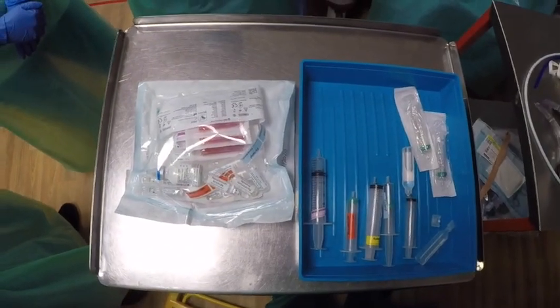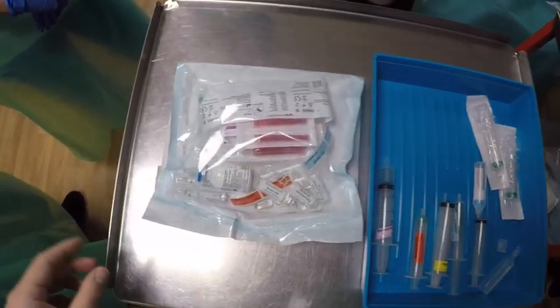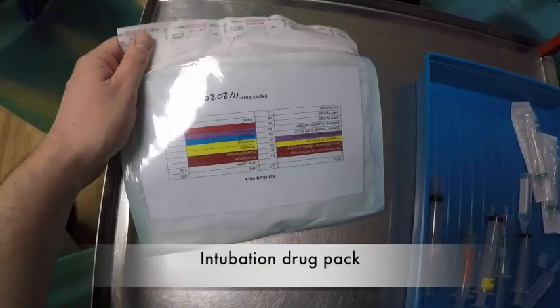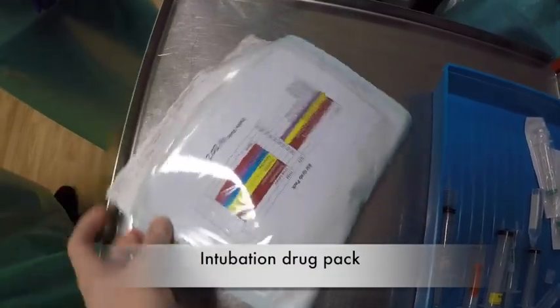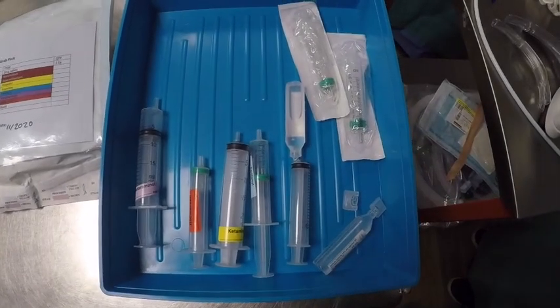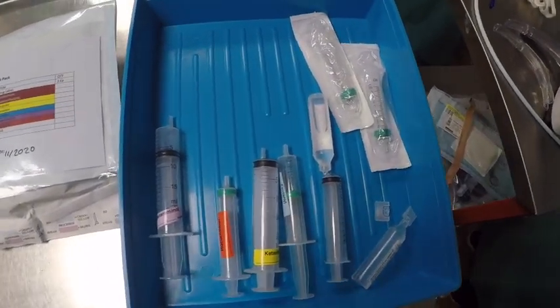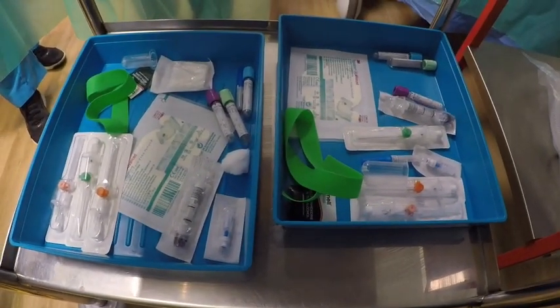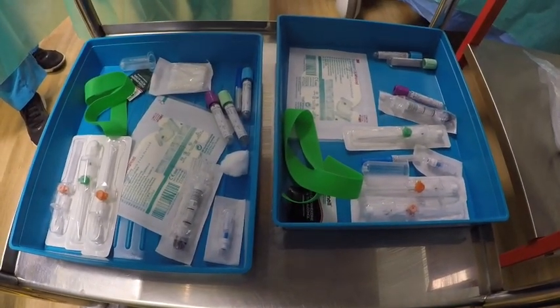On our procedures trolley, as we're anticipating intubation for this patient, we've got the intubation pack which has details of what is inside it, and the drugs which have been drawn up and are ready for intubation. On the second shelf of the procedures trolley, for our immediate priorities we've got two different packs for cannulation.